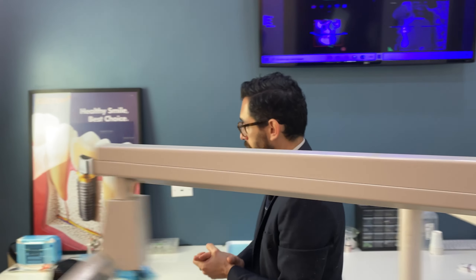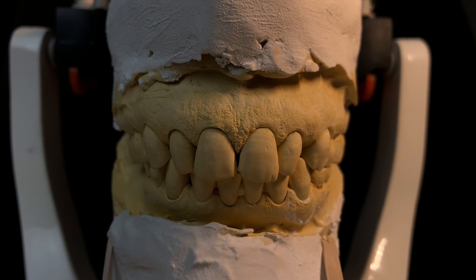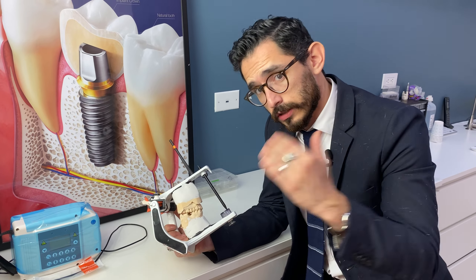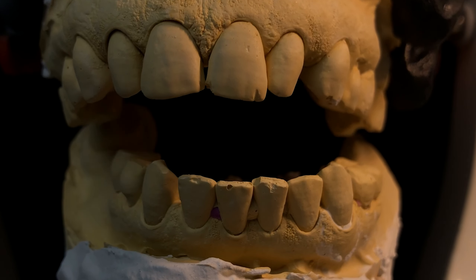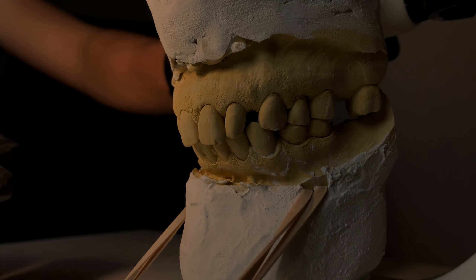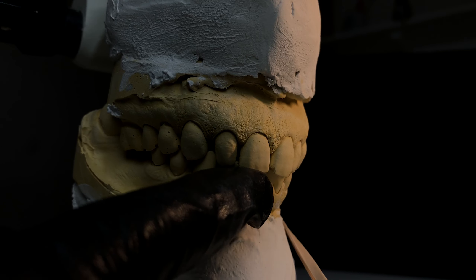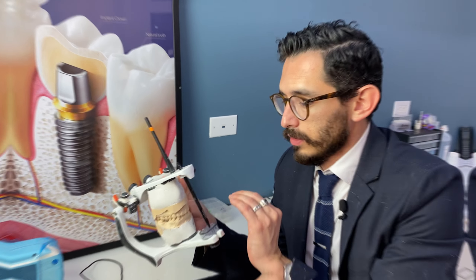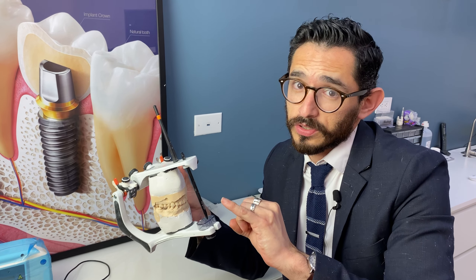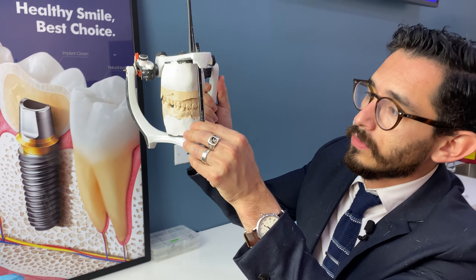We may take some impressions to duplicate your bite and teeth into a model. This is an articulated model of the patient and, as you can see, it is very precise and very close to what the patient has in their mouth. We use this to analyze the structures — the remaining teeth, decay, shapes, inclinations, and even bite — outside of the mouth after your appointment.